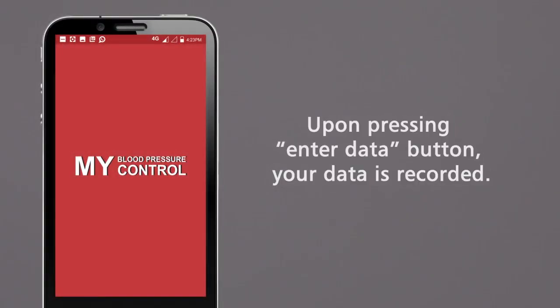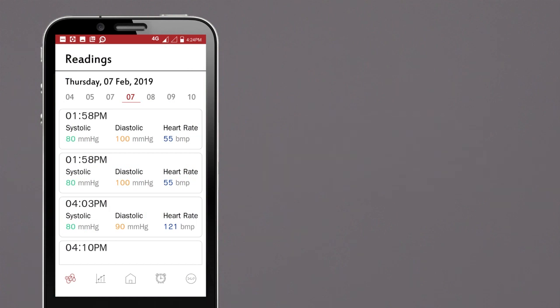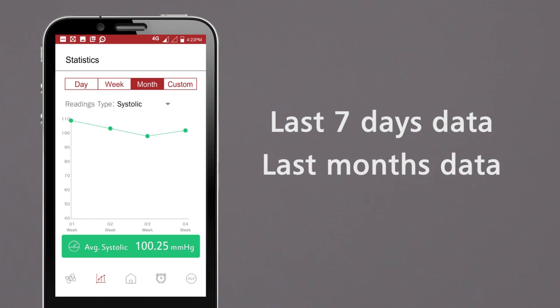Upon pressing ENTER DATA button, your data is recorded. When you are visiting your doctor, the doctor will retrieve previous data and choose either last seven days data or months data to understand your blood pressure pattern and advise you accordingly.